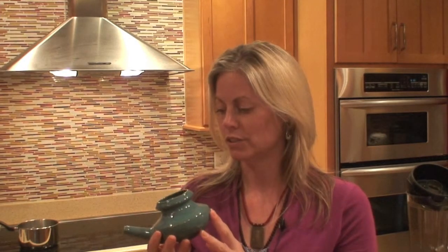If that mucus stays there and isn't cleared properly through the system, then we can end up with sinus infections, which is a really common issue that we see in our day-to-day practice in family medicine. So this tool, the neti pot, is a very simple tool, a very simple self-care practice that you can learn. So we're going to go over that today so that you can learn how to keep the sinuses healthy and hopefully avoid sinus infections. So first we'll cover just a little bit of the anatomy about what the sinuses are, how they are positioned in the facial bones, and what role they play in developing a sinus infection.